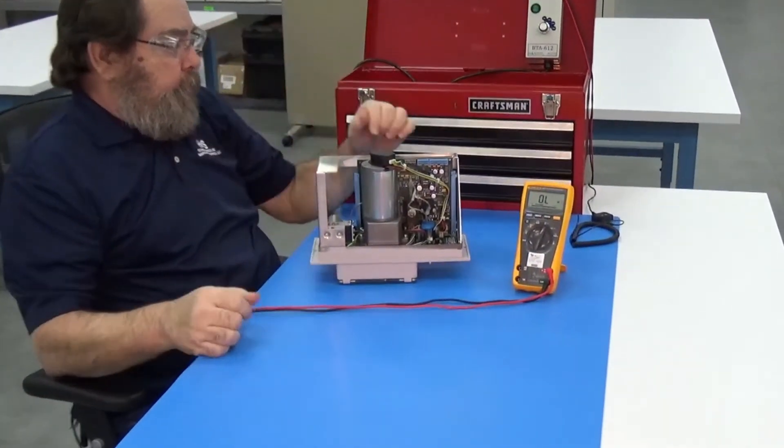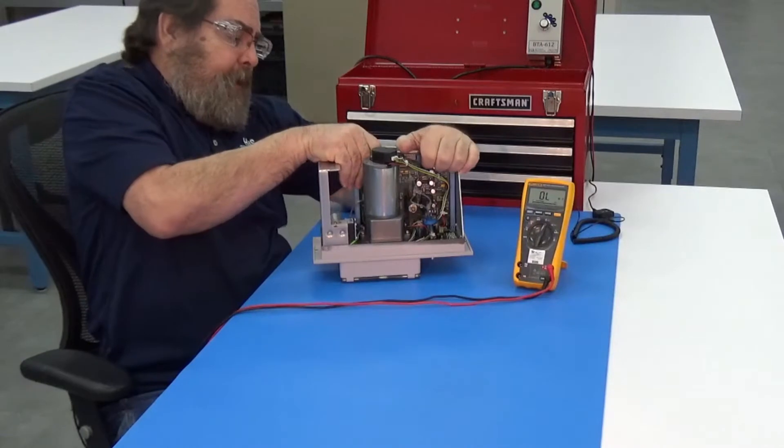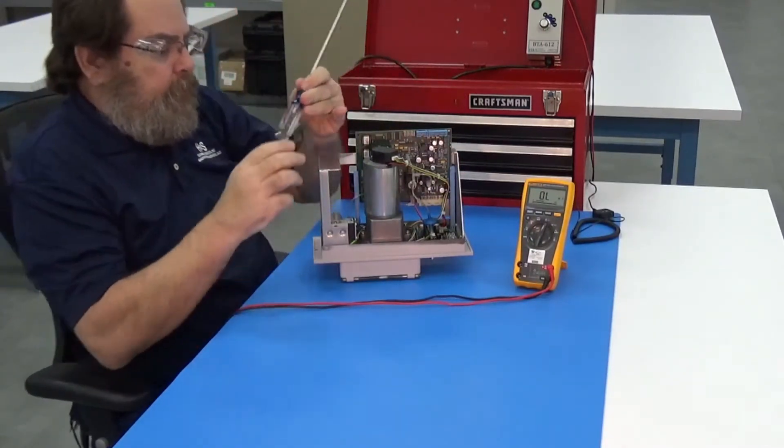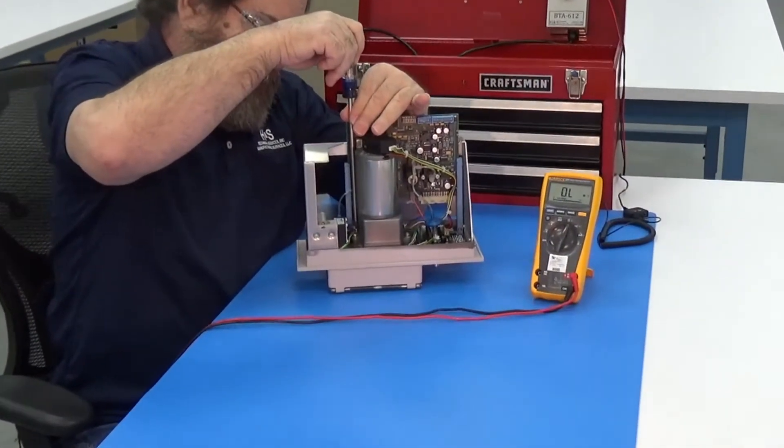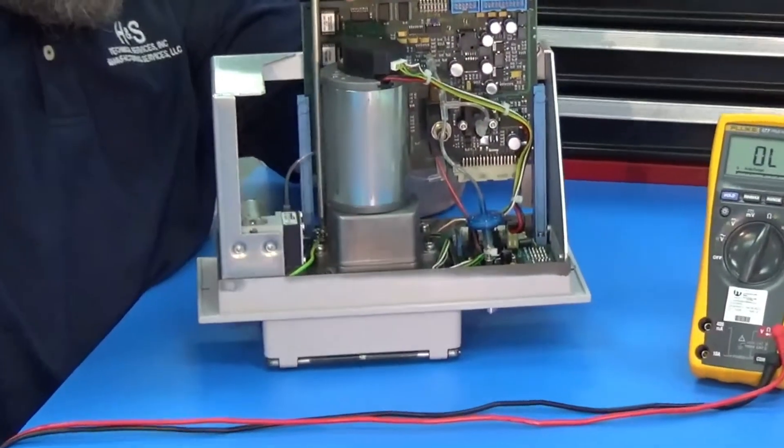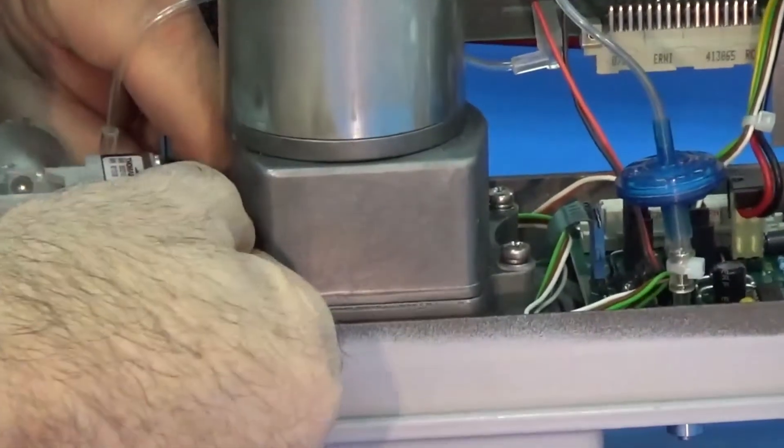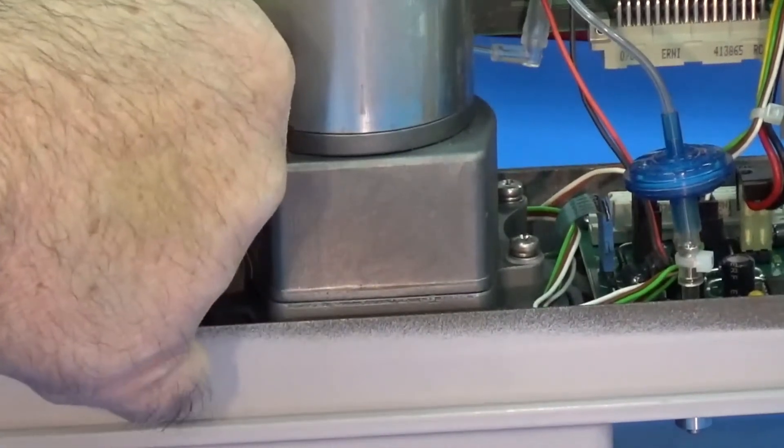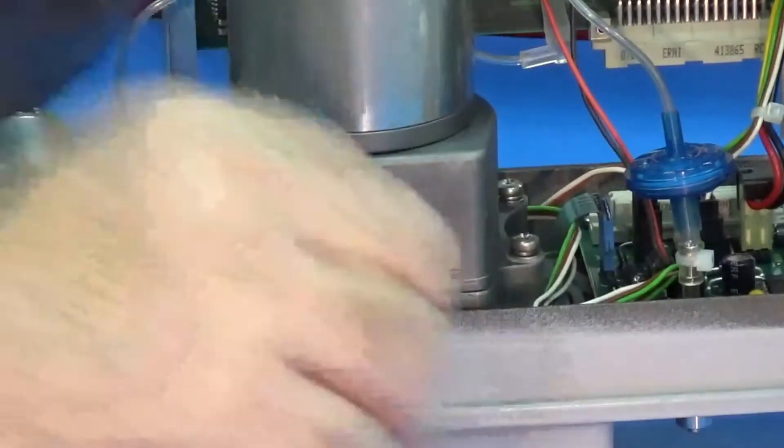We'll need to remove the ground wire, so we'll need to release the board and raise the board up away from the faceplate. Take our P2 Phillips screwdriver and remove the ground screw. Try not to drop the star washer. And we got all of that out.